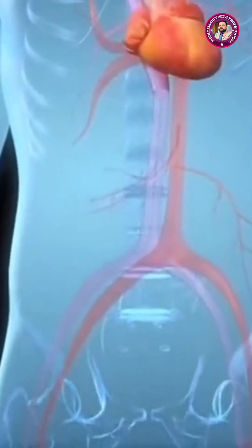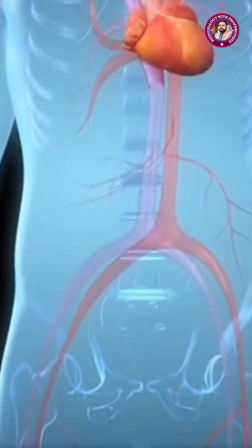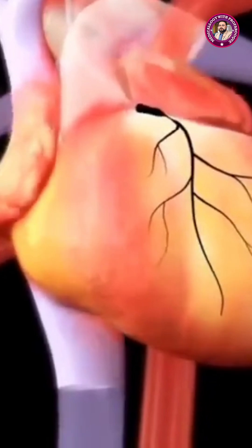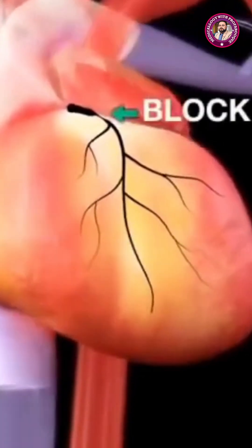At this stage, the guide wire is removed and the catheter tip is accurately placed at the entrance of the coronary artery. A contrast dye is injected, enabling the fluoroscope to capture detailed x-ray images of the artery's interior and helping to precisely locate the blockage. This imaging process is referred to as an angiogram.